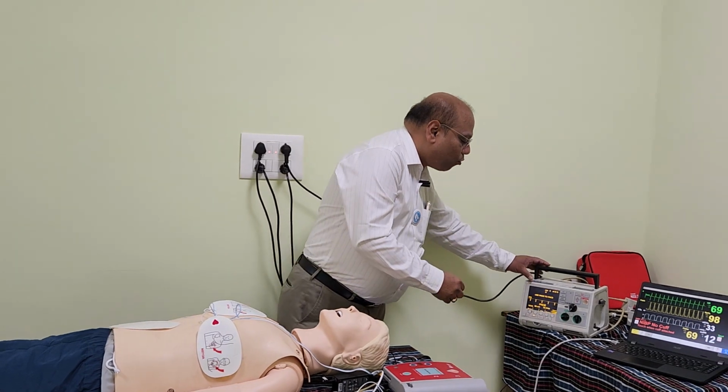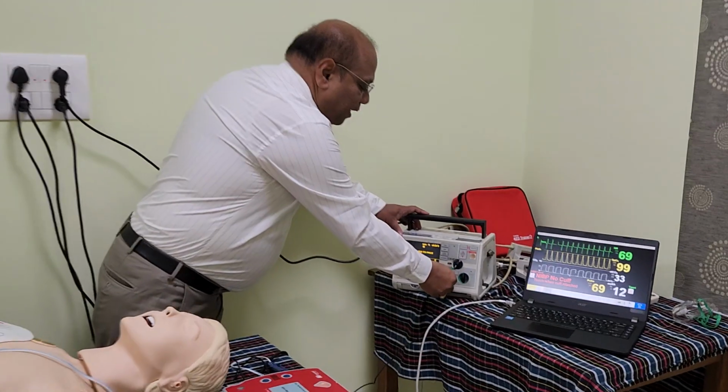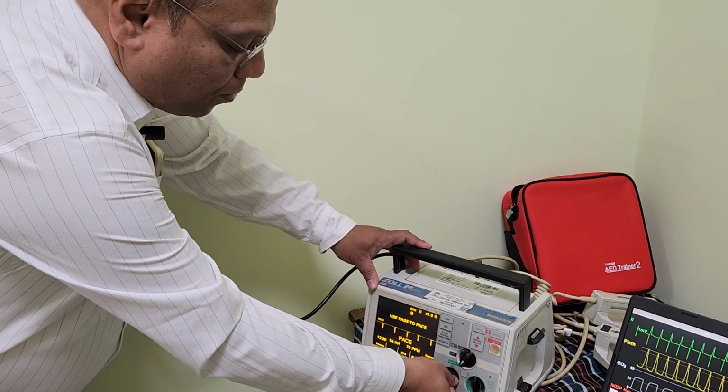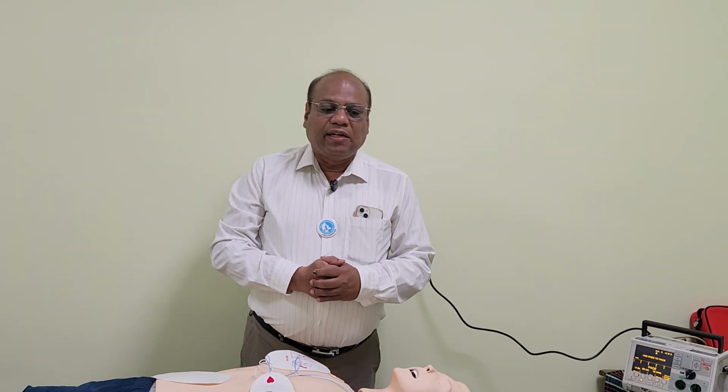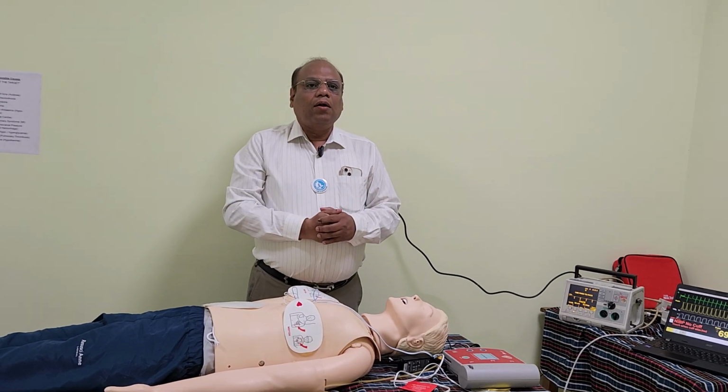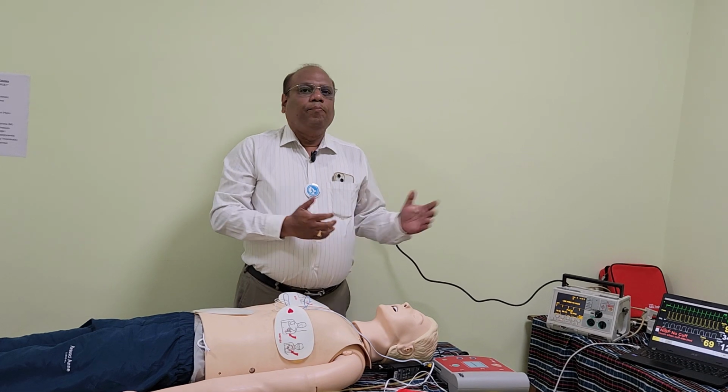Then the student should again go to the control knob for increasing the output and increase it by another 10%, that is 55 milliampere. So at this point the session ends and the discussion can be further continued. What are the different causes of increased chest wall impedance and how are we going to address that? What mode of this transcutaneous pacing is expected in the cath lab, or what could be the cause of this bradycardia.